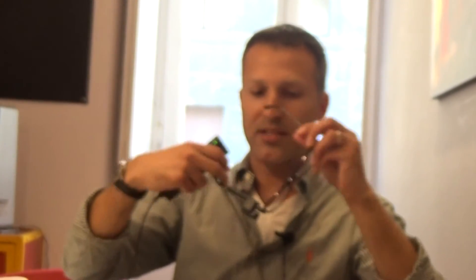So that's the functionality of OrCam. This is really the world's most advanced artificial vision technology. It is very versatile and very convenient. There's nothing like it in terms of OCR — optical character recognition. You put the glasses on with the OrCam camera, put the base unit in your pocket, and you can walk around anywhere and read text, recognize people, including Roberto over here.